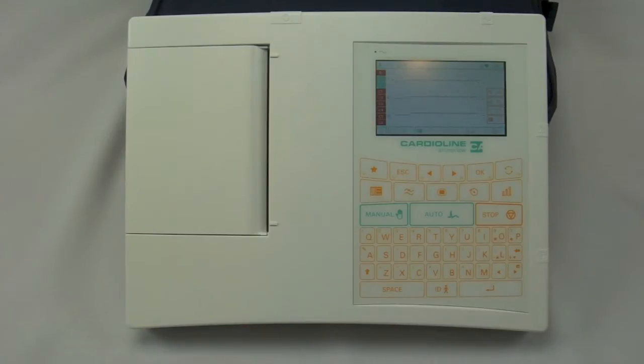It is a full 12 lead EKG system and it does have a three lead preview screen on board which you can see on the display at this point. The AR1200 is available in three configurations.